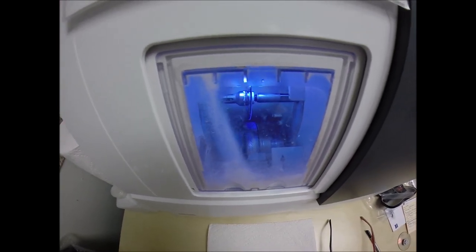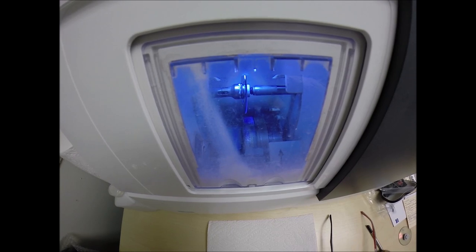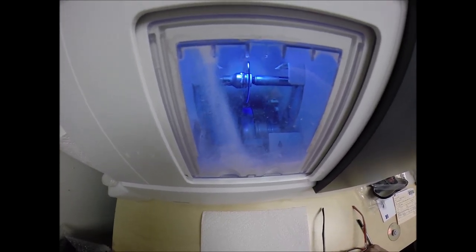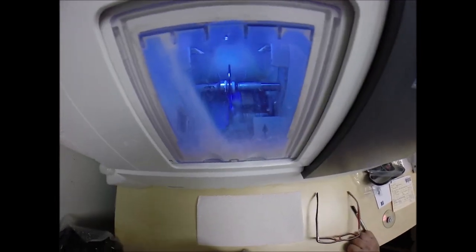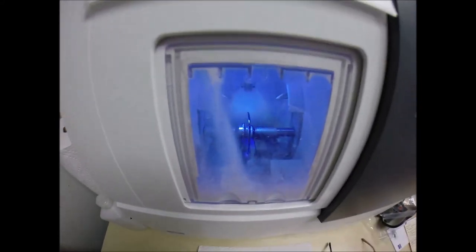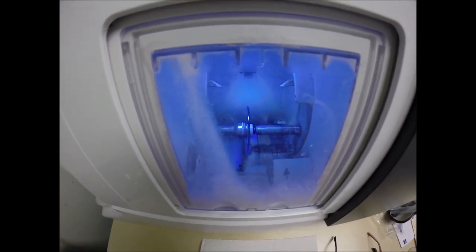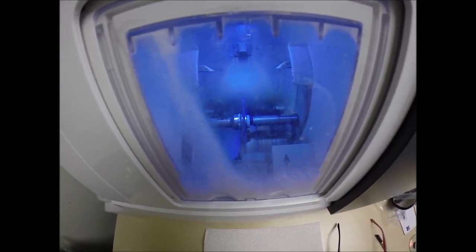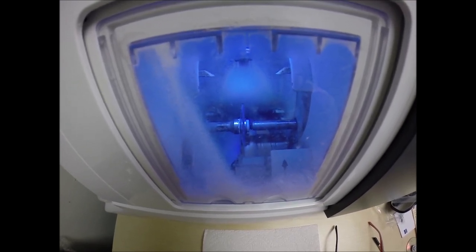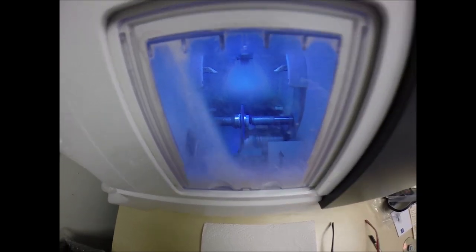The lens is going to be traced by two white styluses, making sure it's large enough to fit into the frame. On the second go-around, it's measuring the thickness to know where to place the bevel, so you have the least amount of edge thickness showing — of which Victor will have none with his prescription in this frame. Now the lens is going to drop down onto the cutting wheel. You see water flickering in the background — that's there to catch the optical sawdust.